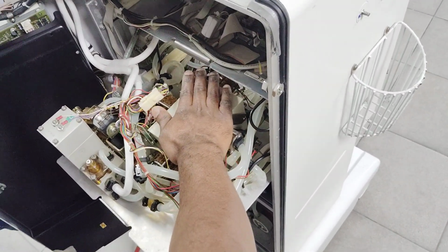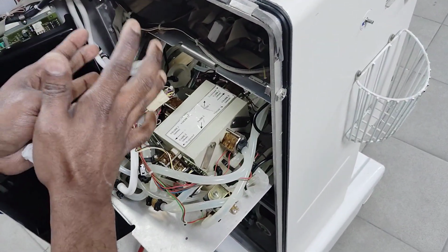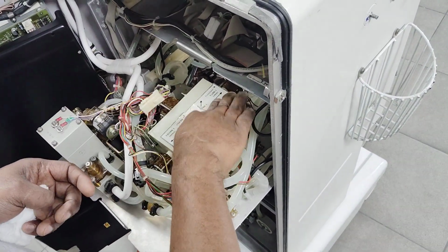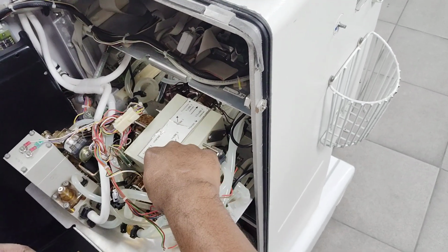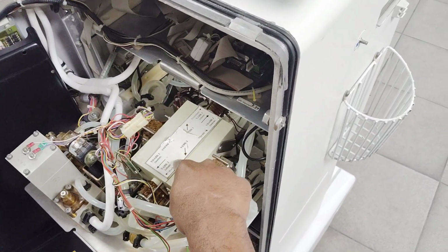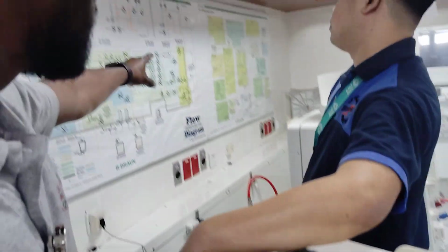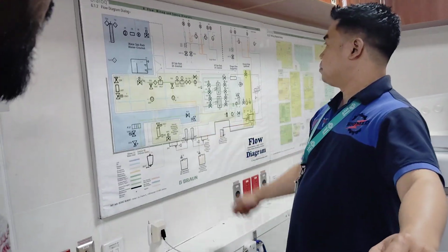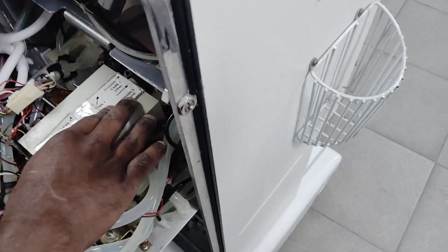This is called the balance chamber. Inside the balance chamber there are two membranes. I will show you how the membranes look, since we have a membrane outside. The valve names are mentioned over there, like VDABK1 and VABK1. From those you can identify what the valve is and where it is placed. Everywhere the valve names are tagged. What each valve's function is, we will see later.